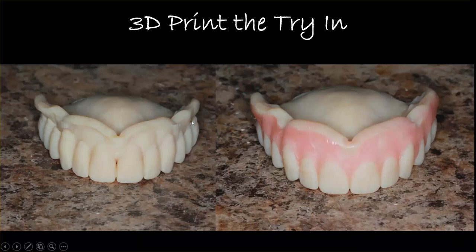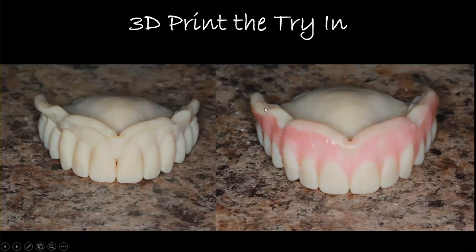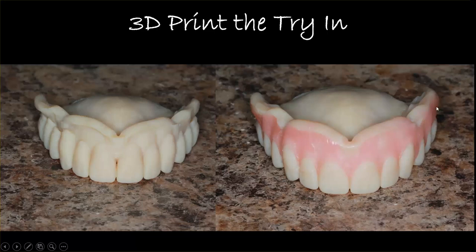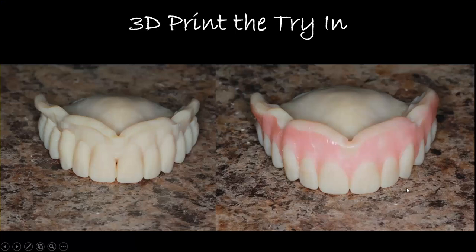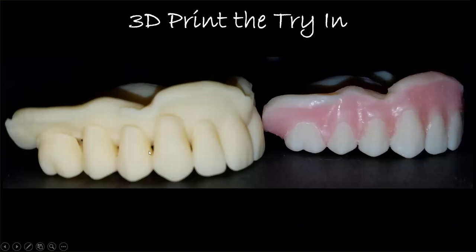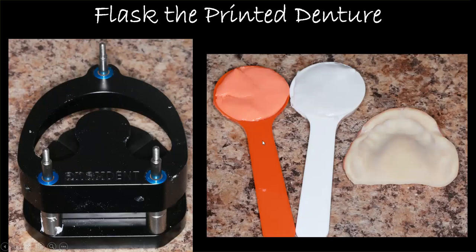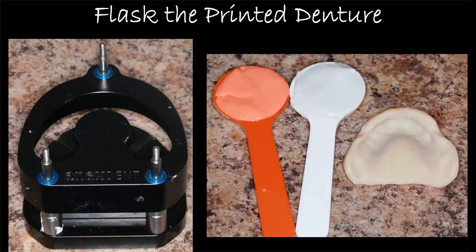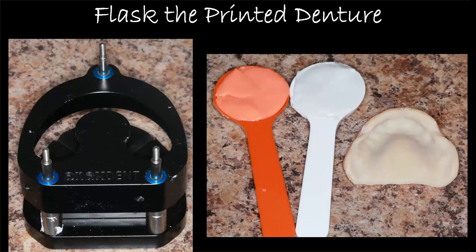The teeth are set to the base and it's all one piece. My preference is to not festoon the gingiva onto it — instead, come back and throw on some wax quickly to do your festooning, which makes for a more accurate try-in. This printed denture is ready for the wax try-in; the teeth are just connected and you print it as a whole unit. Hopefully everything is good. If it's not, you've invested nothing but a little time in the software and can digitally reset very simply.